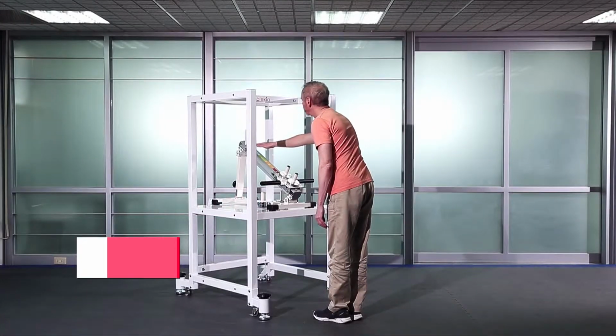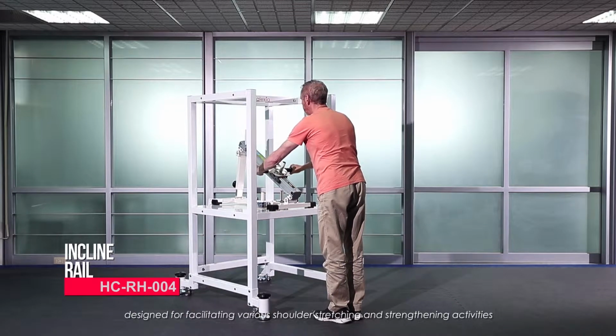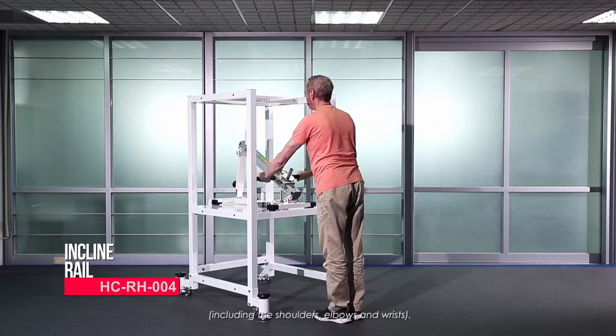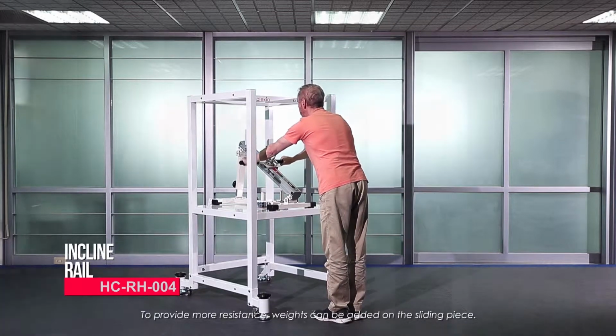Incline rail. The incline rail is a useful range of movement (ROM) exerciser designed for facilitating various shoulder stretching and strengthening activities, including the shoulders, elbows, and wrists. To provide more resistance, weights can be added on the sliding piece.